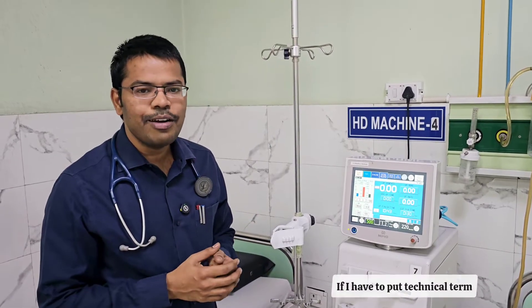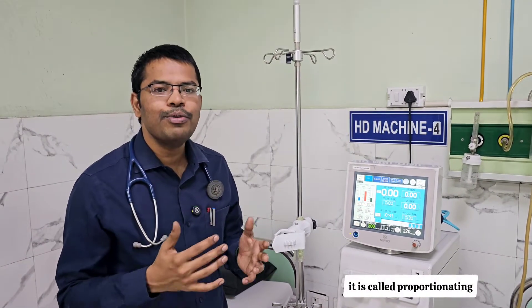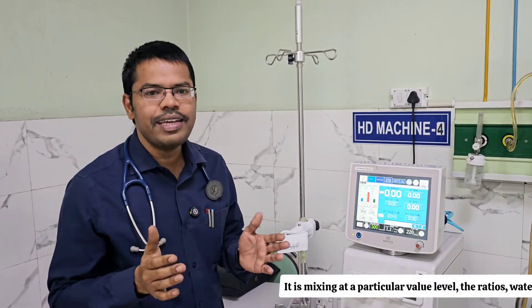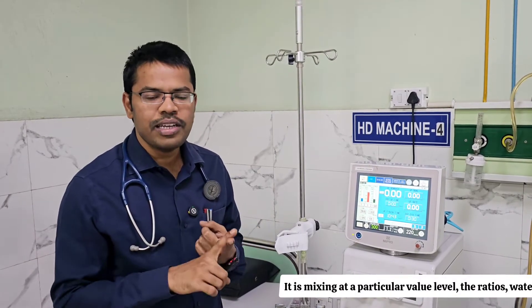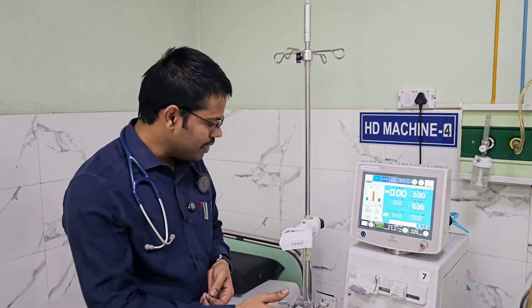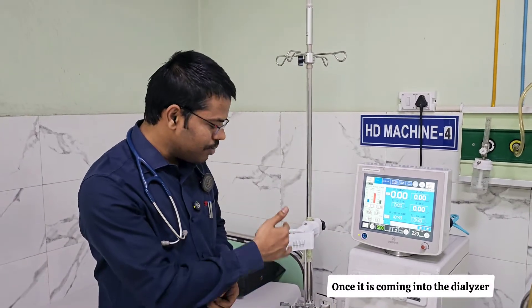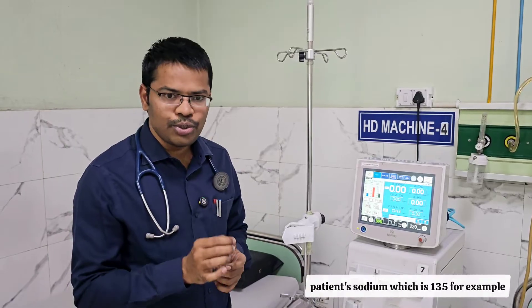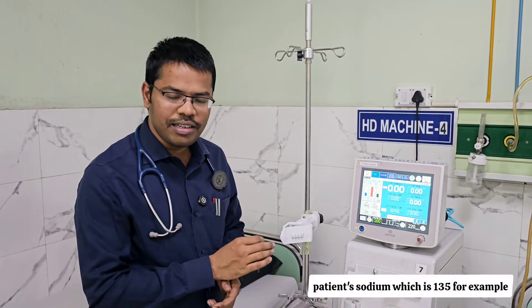All three components — water, electrolytes (Part A), and bicarbonate (Part B) — get mixed together. The technical term for this mixing process is proportionating, where mixing occurs at a particular ratio. Once the dialysate enters the dialyzer, it has to match the patient's blood. For example, if patient sodium is 135, the dialysate sodium must be exactly the same.